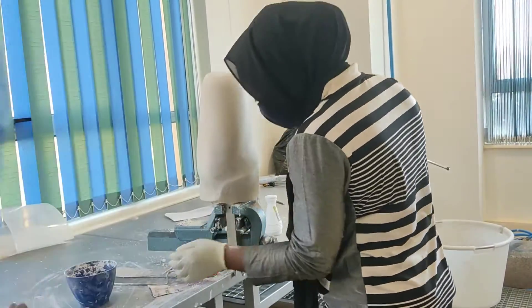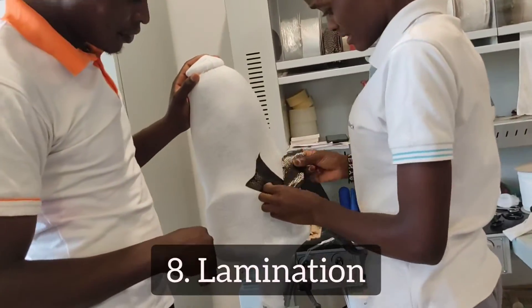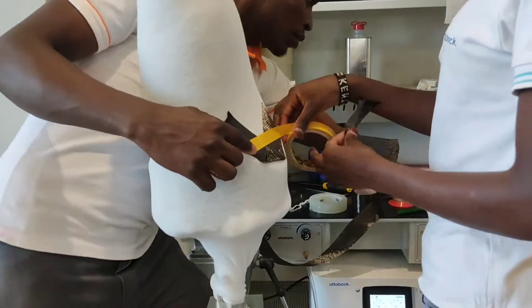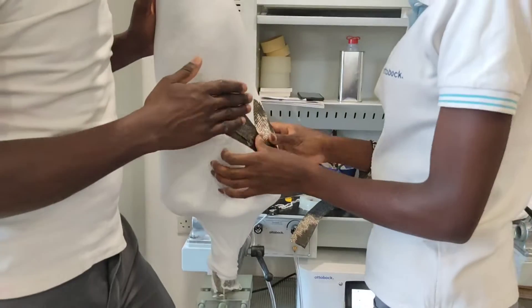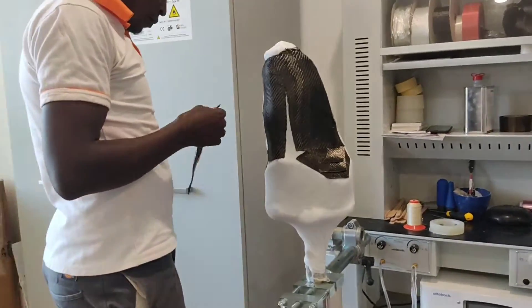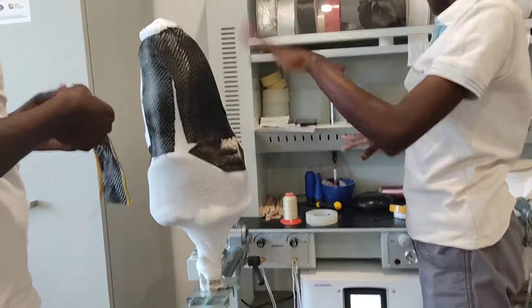I eventually got an idea of it and I was happy — I did a happy dance at some point. Then we went on to the laminating room, and here is Rhoda — she is putting carbon fiber on a stump cast and they're taping it down.